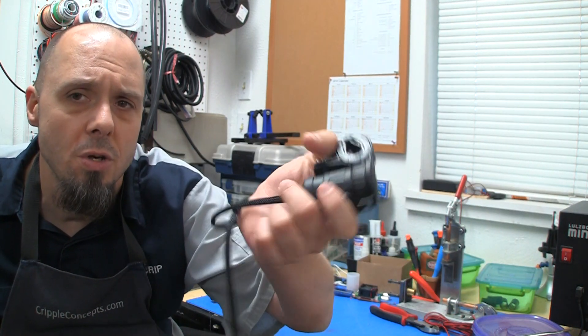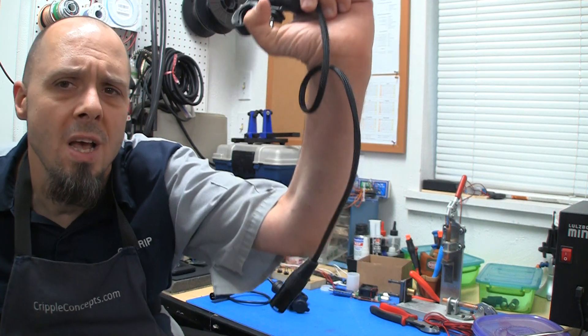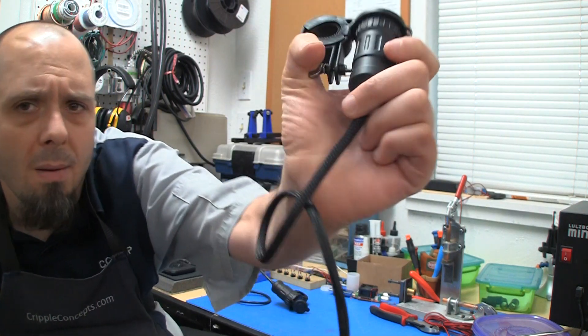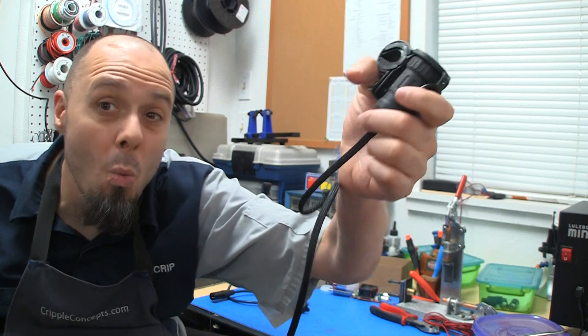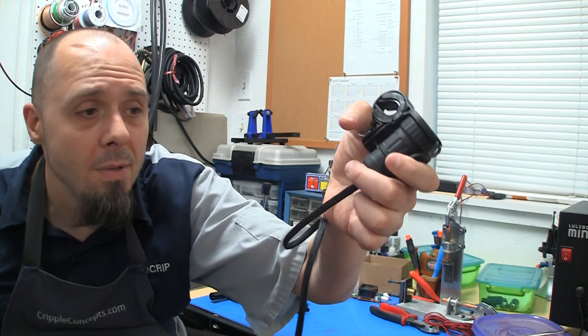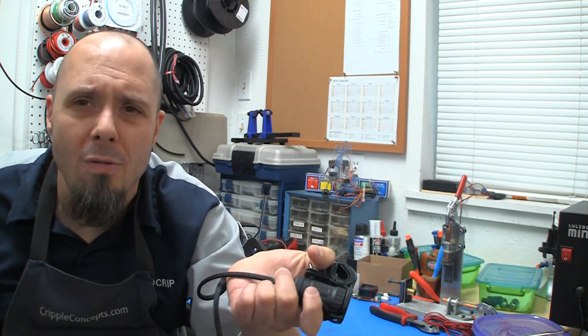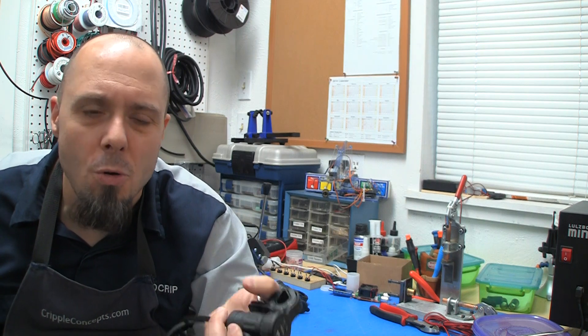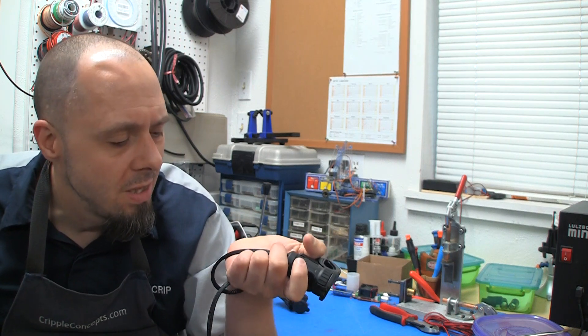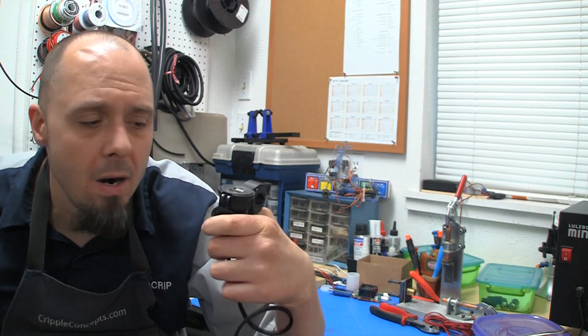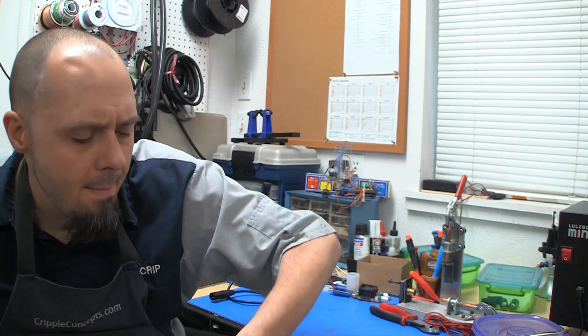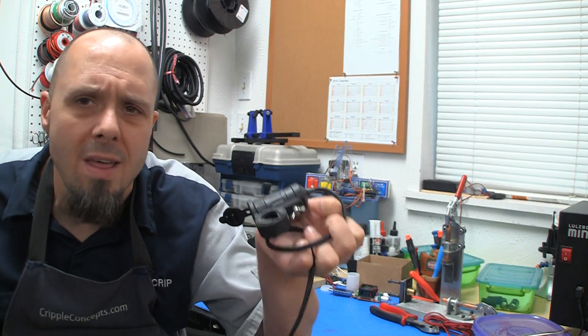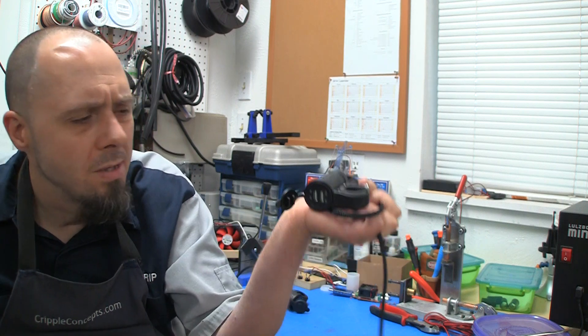So, here's the first one. This is their original. This has been around for a couple of years. They have them on Amazon. It's got like a, I forget, I think it's a one meter cable. This one's covered in like a woven cloth loom. It's actually kind of nice, you can see the red and black wires inside of there. But I actually kind of like this cloth loom.